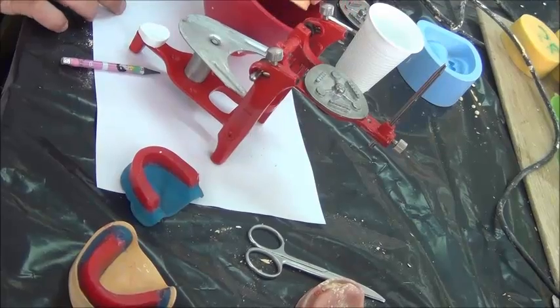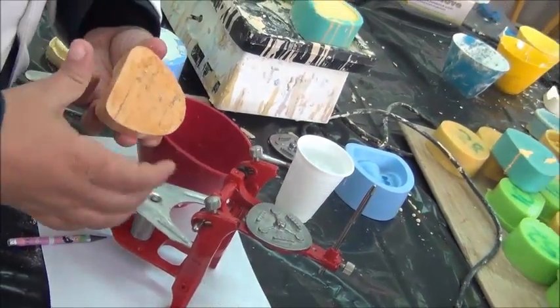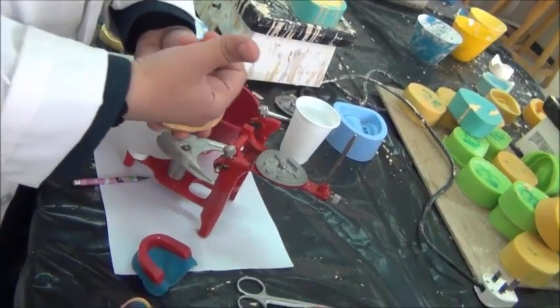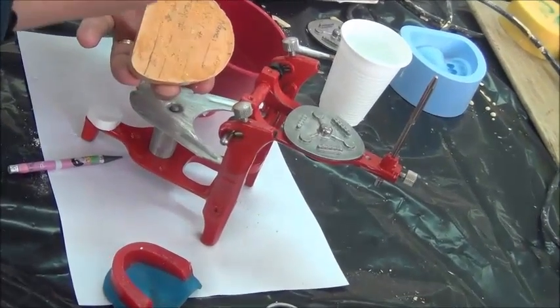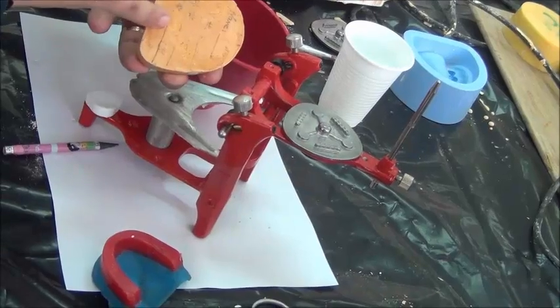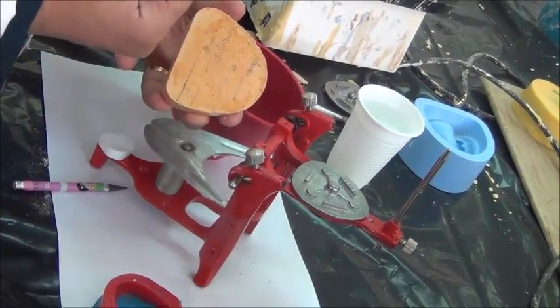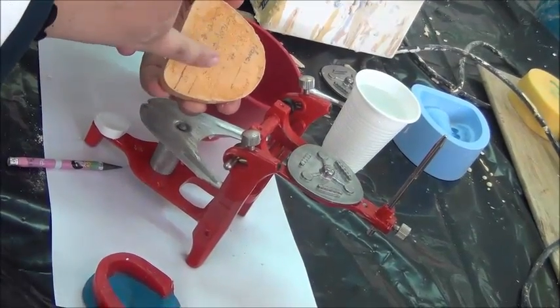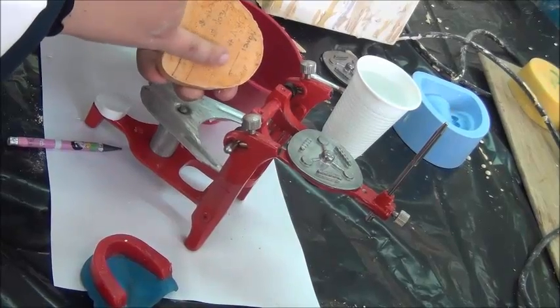Now the cast is soaked. The function of soaking the cast is that water will go into the crystals on the surface and partially dissolve them. When the new plaster comes and meets the old gypsum, this is stone, but they are all gypsum material. They have almost the same chemical composition. So once we have soaked these crystals, part of them have dissolved and became a bit soft.